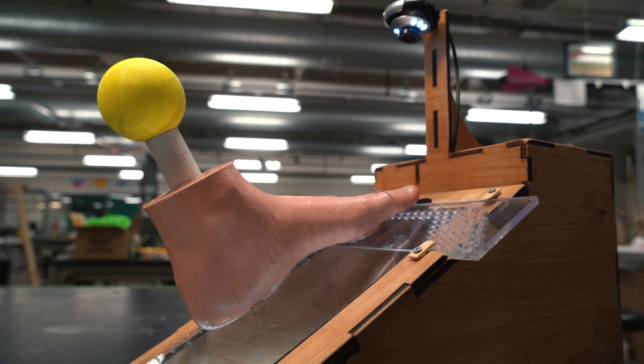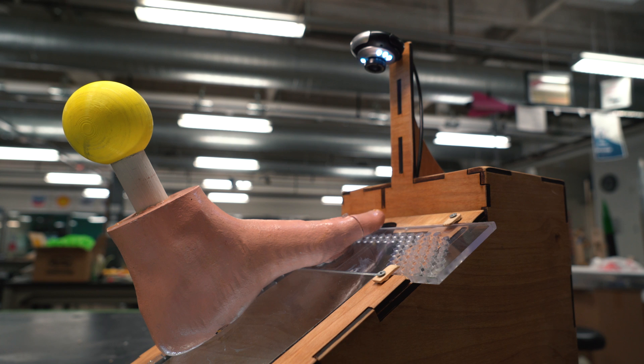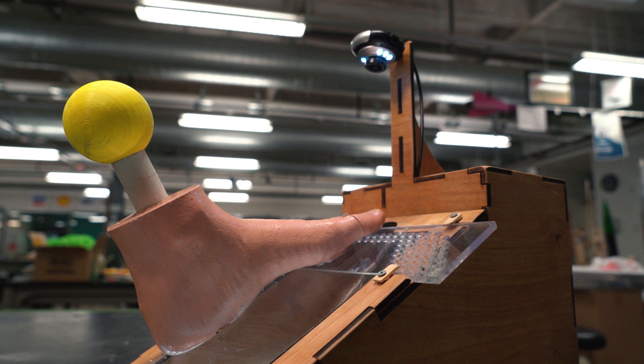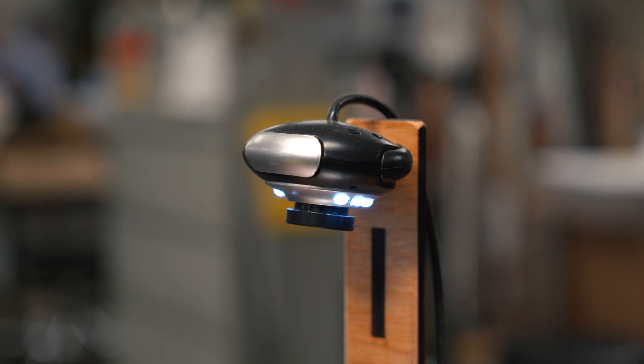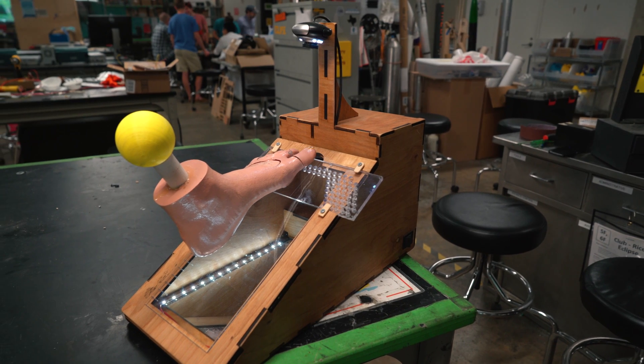And if your visual acuity is harmed in any way, you absolutely cannot see your foot from a mirror that is three, four feet away. So this device kind of helps bridge the gap between things that are very cheap and don't work very well, and expensive medical instruments that are way too expensive for any normal person to have.